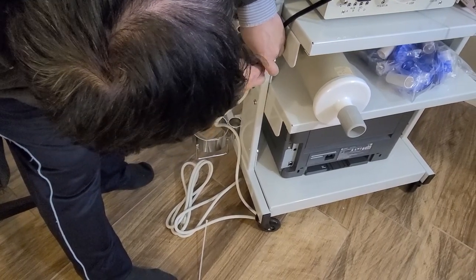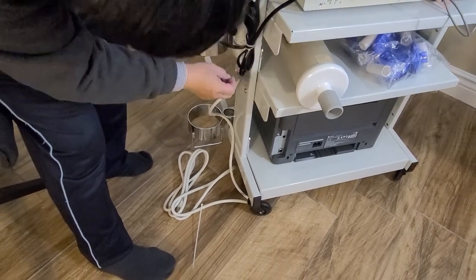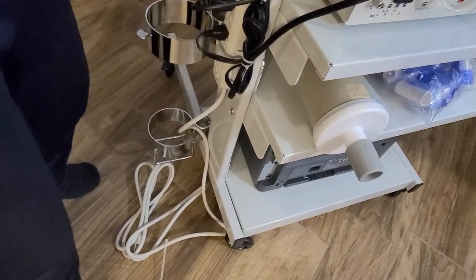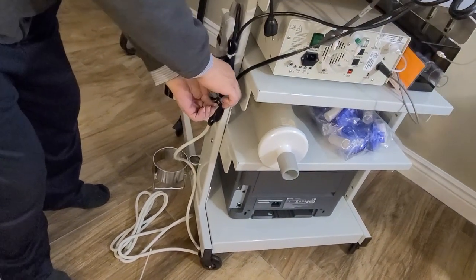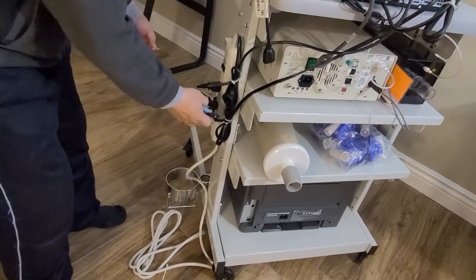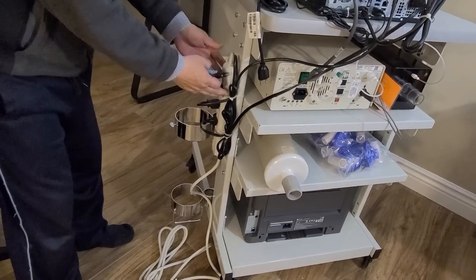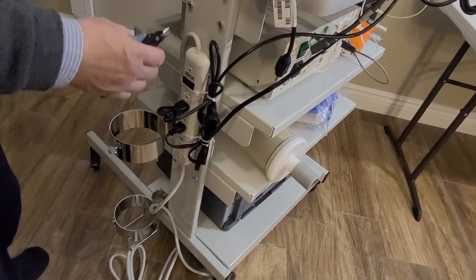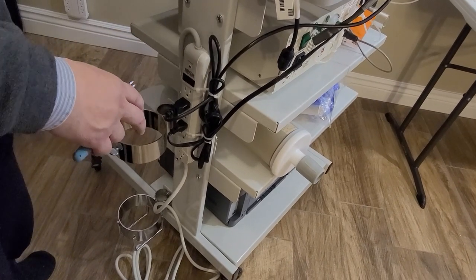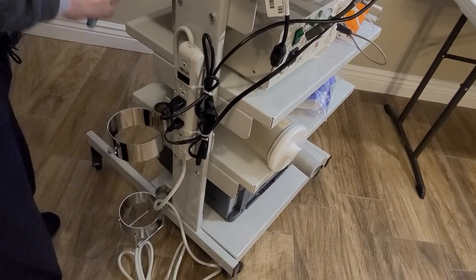And this one, I give it to the number four socket. Number three is for the printer. So with this extra tie to the power strip, these two cables look nice and neat instead of floating hanging around.